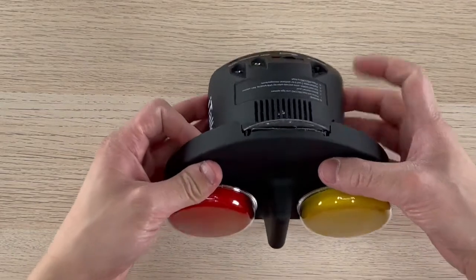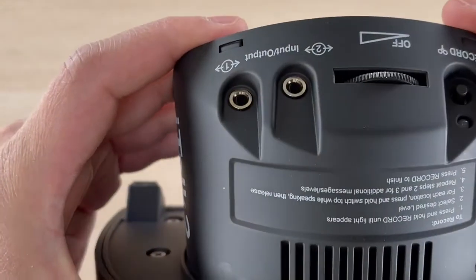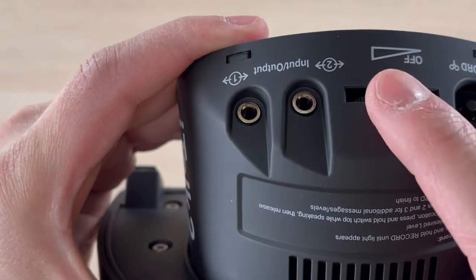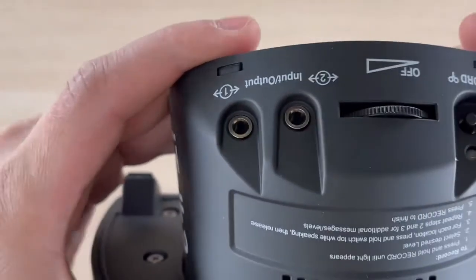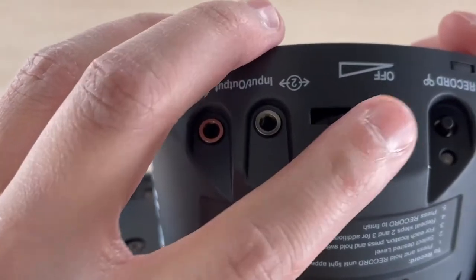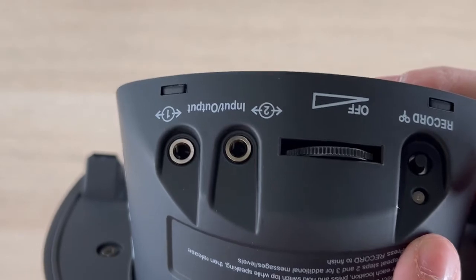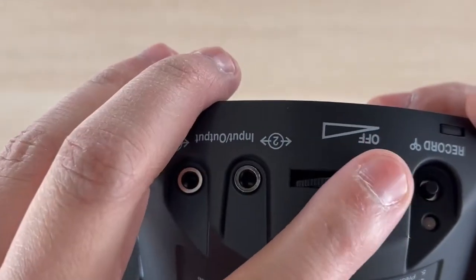Now let's power on the device. As you can see here, there is a volume control and also a power switch. Turn it to the left and the LED to the right of it will blink red once, and you will also hear a click.